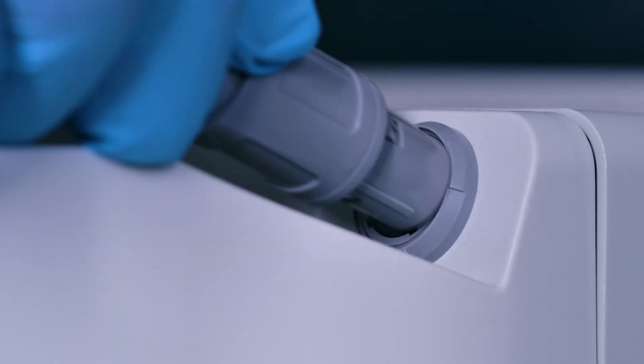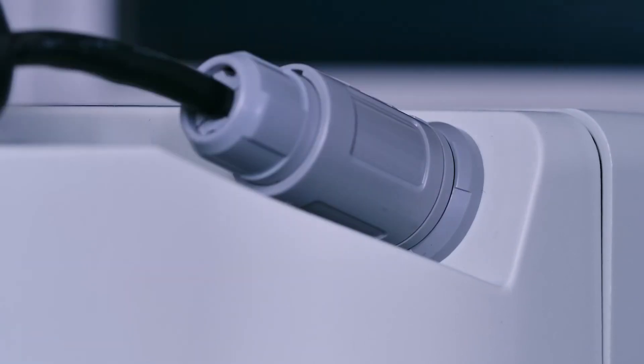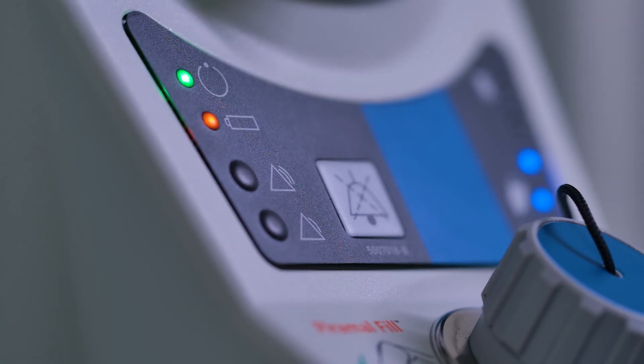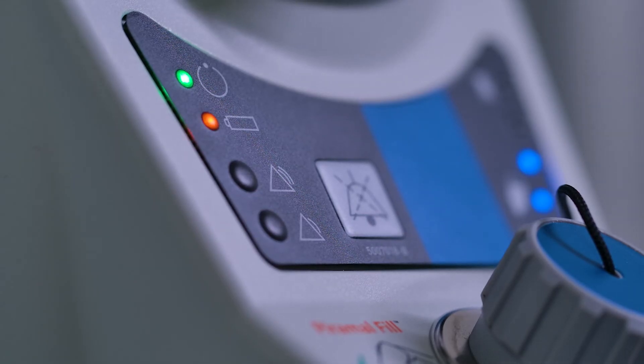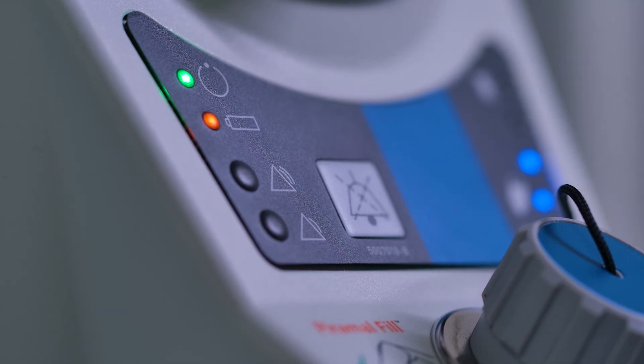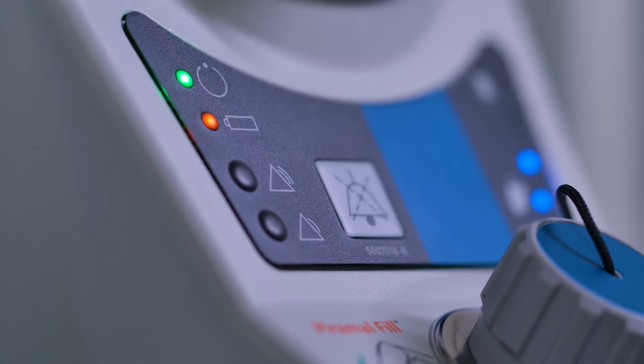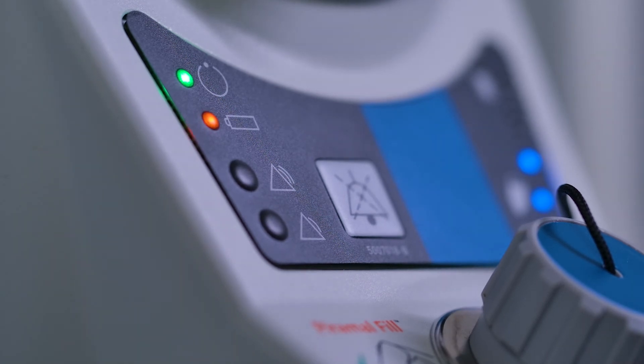The battery will be recharged automatically when the mains electrical supply is restored. The power indicator will flash until the battery charge is at a safe level to provide at least 5 minutes of battery backup. The battery indicator will light continuously until the battery is fully charged.